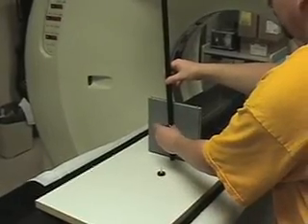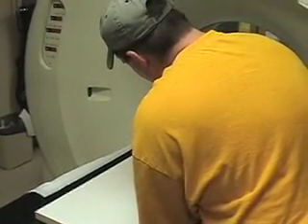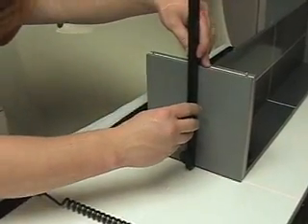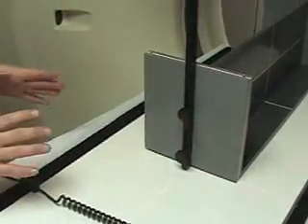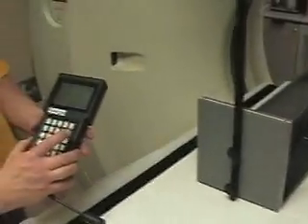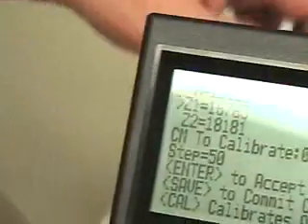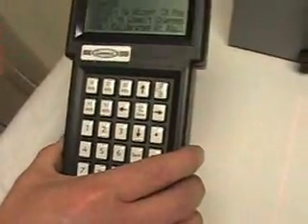Lining the holes. We reversed the ruler around, now I'm just aligning it to 500, just like the last time we aligned it on the 500. Align on the ruler, tighten it. Once that's done, we're going to calibrate the other laser — in this case it's Z1. We need to change the cursor of the carriage to match Z1. Once that's done, you're able to do the same thing as before — from zero to minus ten, and then from zero to positive thirty. Once that's done, save it, just like before on the other one, and you're done with the calibration.